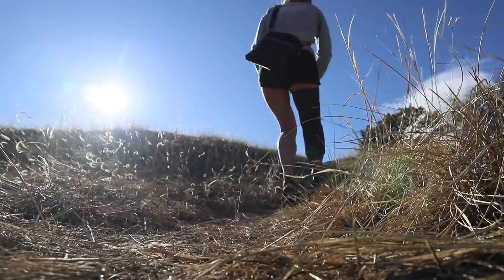This hill is going to be a little bit of a challenge. I just walked down that hill and noticed the capabilities of my leg — the actual angle that I have. I haven't had many chances to really push it just yet, but walking down a hill like that, I really feel the motion kick in, like the torsion ball that I have. I feel that really being put to use and I feel how much flexibility my foot has. It's really very effective for being outside, which is the whole reason I got this particular ankle — the ProFlex XZ torsion — and it's cool to actually feel it working.